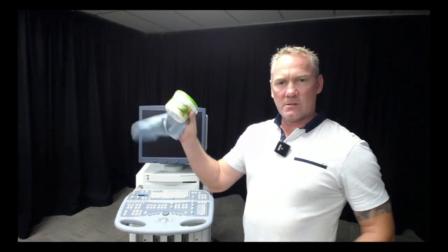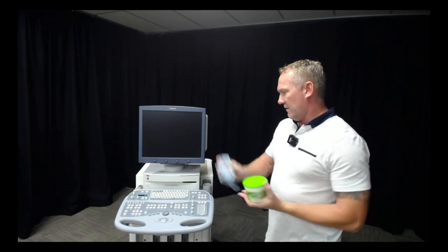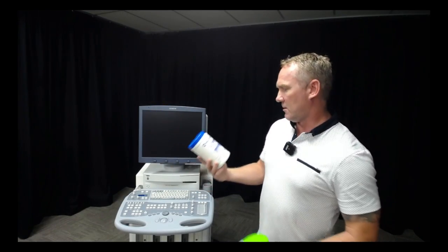I've gone over it a second time using bactericidal wipes, some alco wipes. It took me ages, probably the better part of an hour giving this machine a good polish up. It shouldn't take that long if you've been maintaining it regularly.